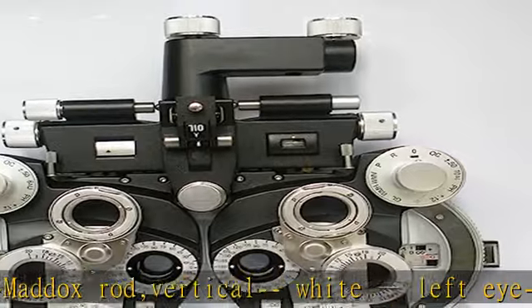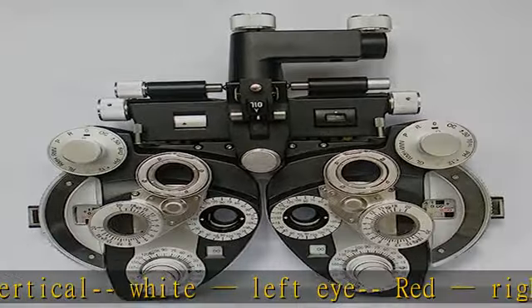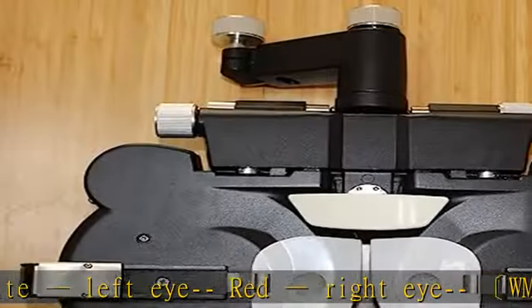PD adjustment 48 to 75 mm, 1 mm step. Standard accessory: one near point rod.